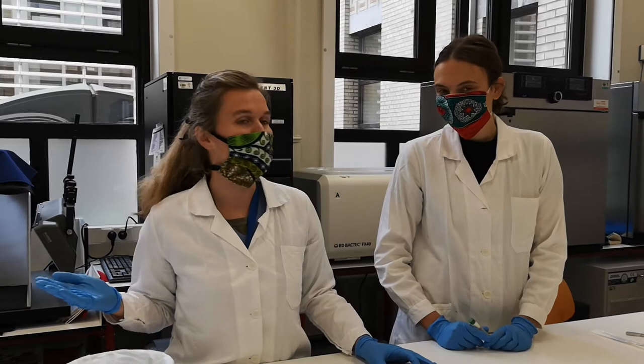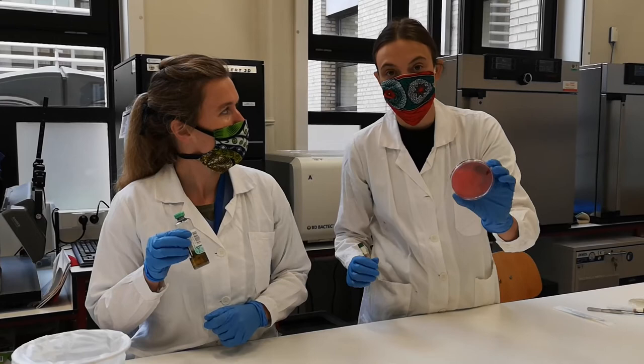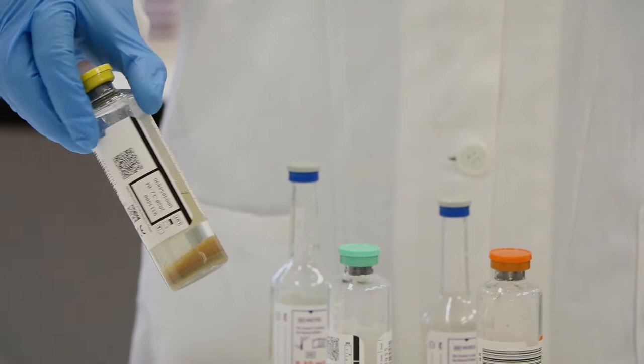Hello! Hi! I'm Anne-Sophie and I am Marianne. We will show you around in our bacteriology laboratory. We will explain how to work up a blood culture from the reception of the blood culture bottle in the laboratory until identifying the bacteria to antibiotic susceptibility testing.